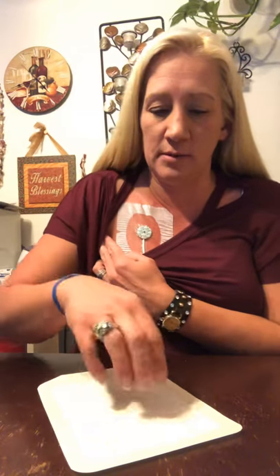When you go to put the Tegaderm on, I find it easier to put one end at the top, right above the site, making sure the gauze is covering everything. Sometimes it leaves red marks and it might hurt a little pulling your skin, but you get used to it. It keeps me dry and I'm able to take a shower without worrying about my site getting wet. I hope this helps — thank you.